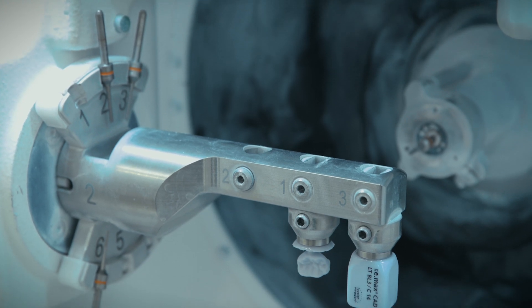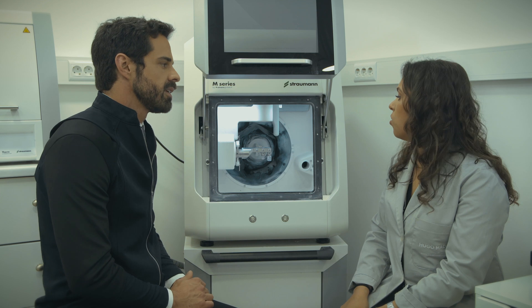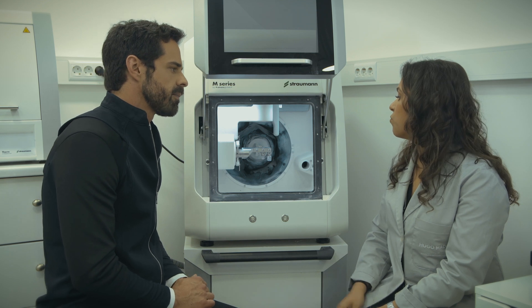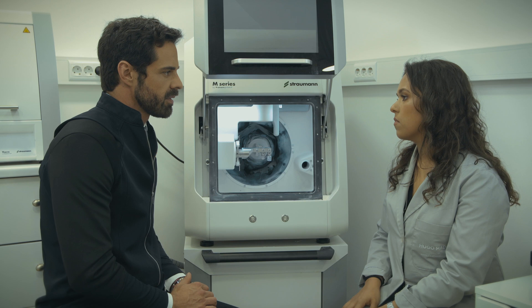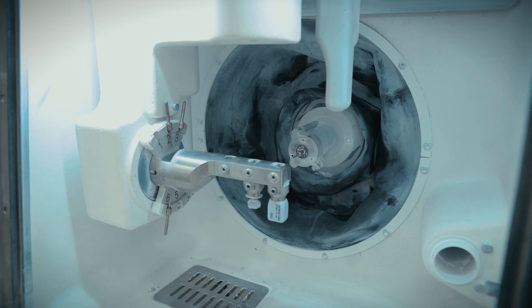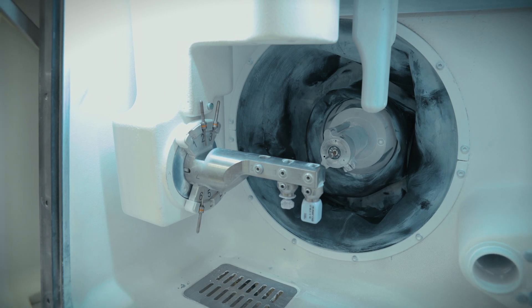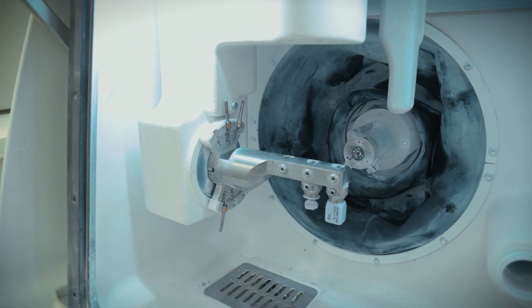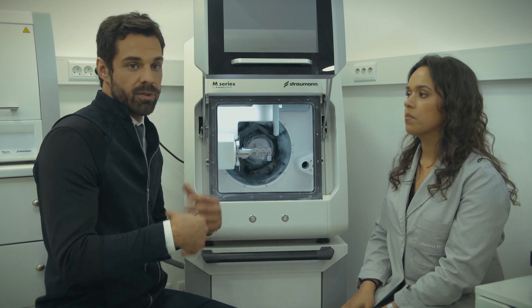And after this, is it necessary any kind of process to the crown? Only a crystallization. And how long does crystallization take, for example? Ten minutes. Okay, this is a reduction process. We have a block and then with the drills inside of this milling machine, we can transform the block into our final product — our crown, our veneer.